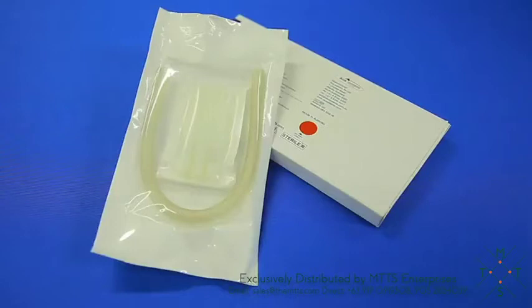The capsules are supplied sterile, preloaded with an ultra sharp blade and an independent seal to ensure suction is maintained for the complete duration of the biopsy.